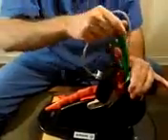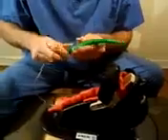One technique I like to do — because we don't live in a perfect world and people want to move around, making it difficult if you're by yourself — I call it the hand-on. That way if they're moving, you can still suction them. It may look a little mean, but you're really just holding them. If somebody was really moving a lot, you could use a two-person approach: one person holds the device while the partner does the suctioning.